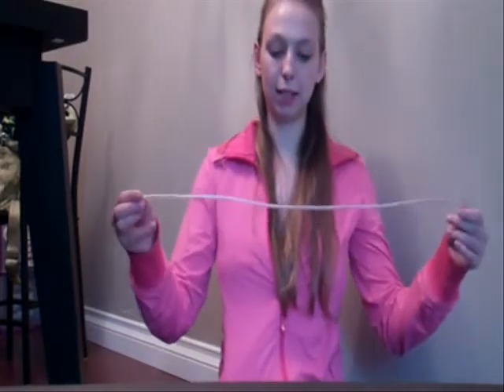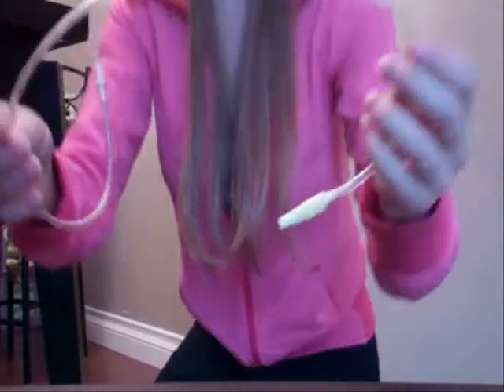The tubing — I've got a couple of issues with the tubing. After maybe ten uses, I found it starting to get condensation. There's quite a bit of condensation in there, which is really worrisome for hygiene reasons. You can purchase new tubing though, so I just bought a new one. But I felt that was a little too soon for that to start to go.